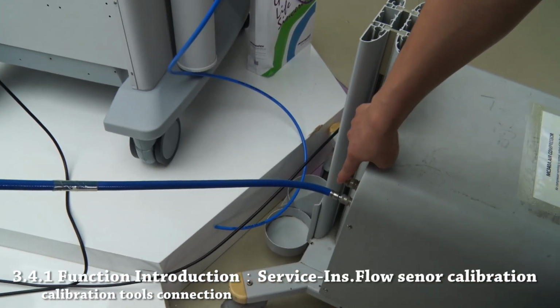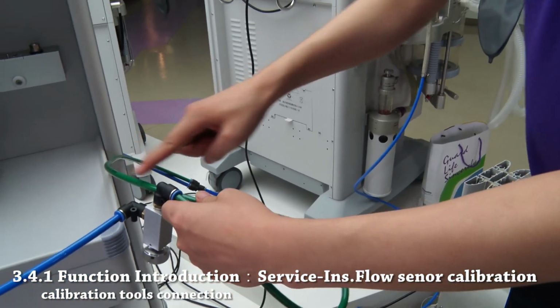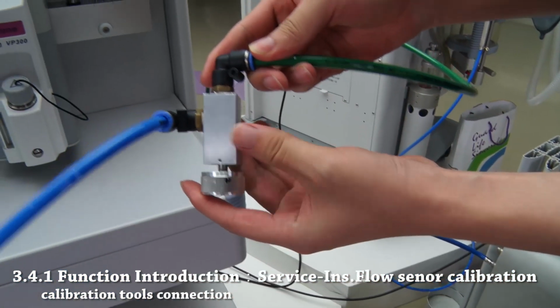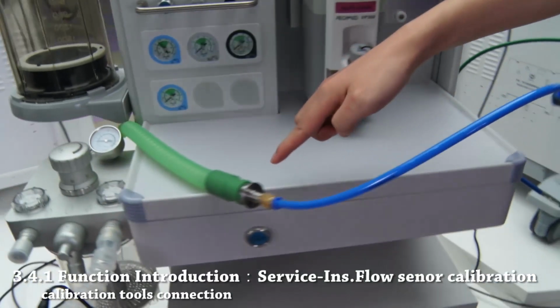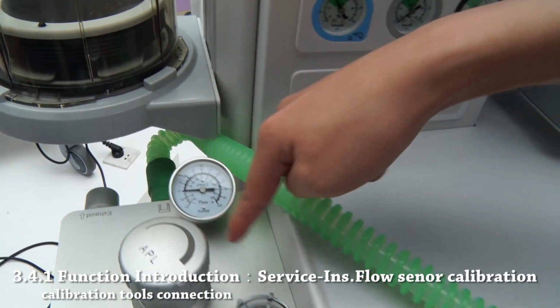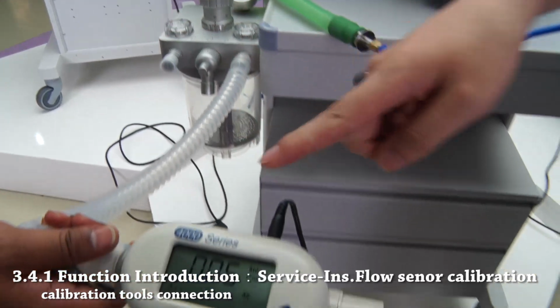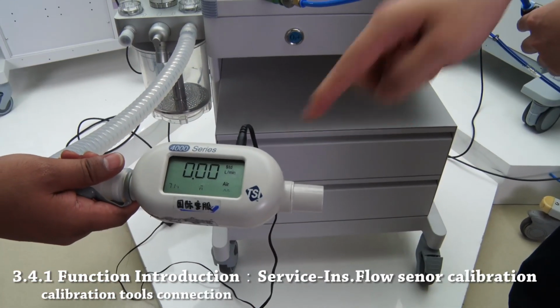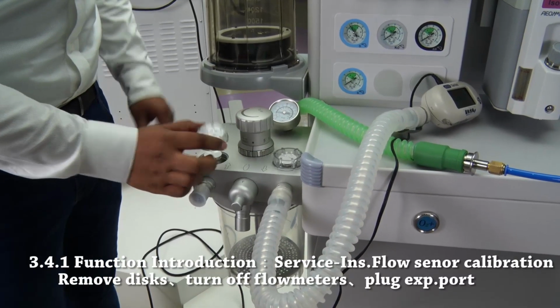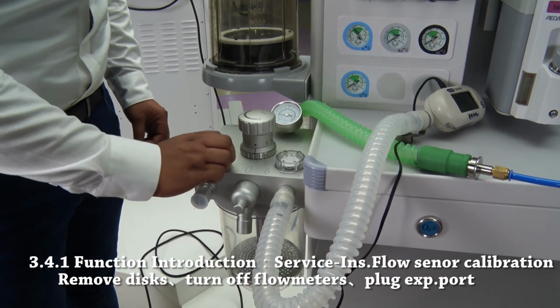Here we can see steps 4 and 5, and here it's displayed how the calibration tools are connected. This is throttle valve. And this is VT monitor. These are steps 1, 2 and 3, so make sure to remove discs, turn off the flow meters and plug the expiratory port.